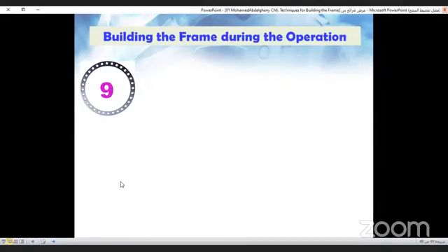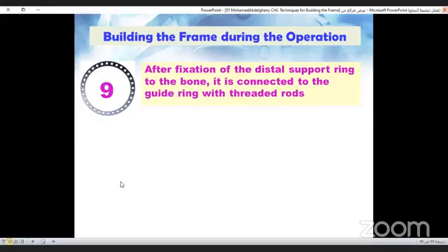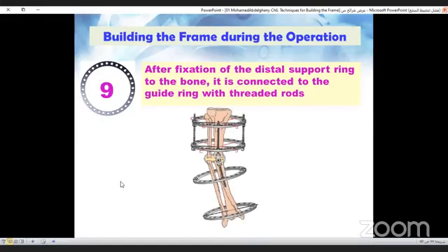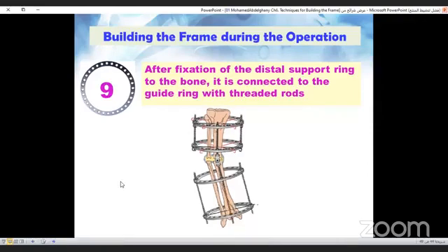Step nine, the distal support ring is connected to the guide ring with threaded rods. Like this.